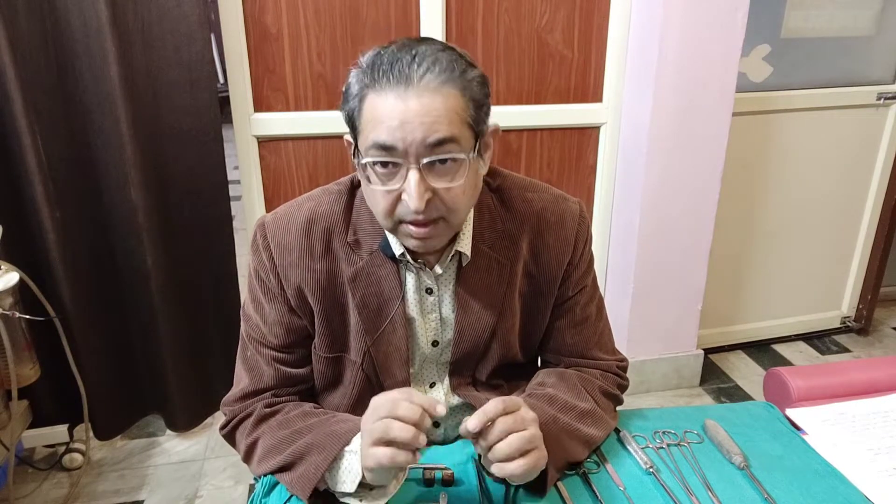Today in this video demonstration, I am going to tell you about the instruments that are used in tonsillectomy and adenoidectomy operations. Before we start, what we need to know is that commonly in the viva about instruments, the examiner wishes to know the name of the instrument, where it is used, and how it is used. The student is supposed to tell the particular step where that instrument is used, and if possible, the correct holding technique. It gives a good impression.